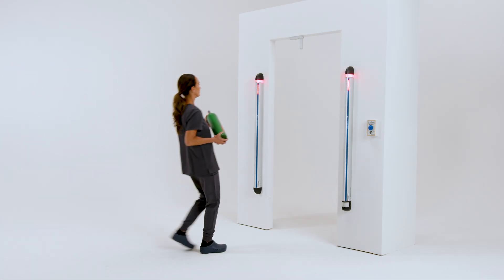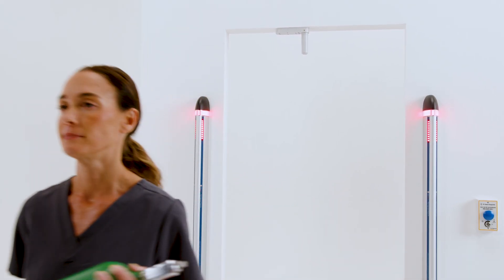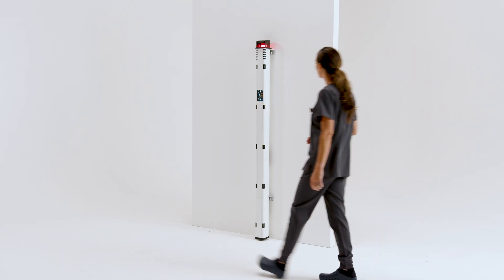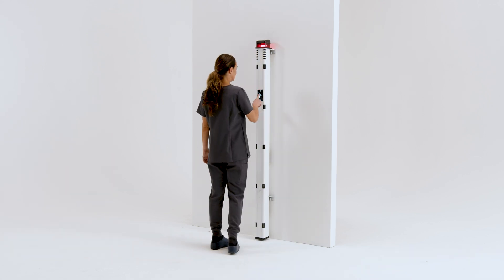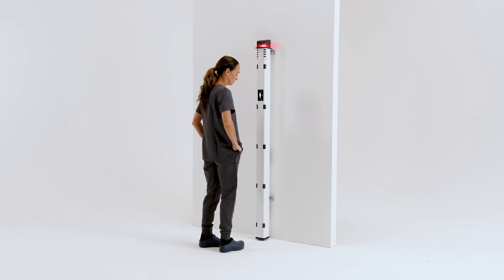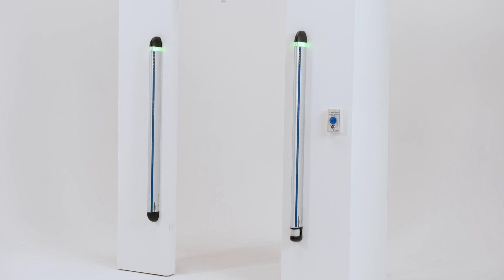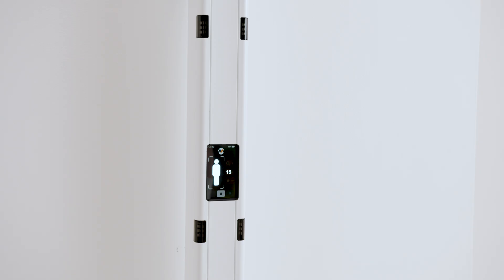With its trustworthy, always-on detection, you receive visual early warnings, giving you ample time to react and ensure safety. But it's not just about detection — our systems are designed to prioritize user experience. Clear, intuitive, eye-level alerts provide advanced visual notice, while our smart alarm ensures a peaceful environment by reducing unnecessary alerts.